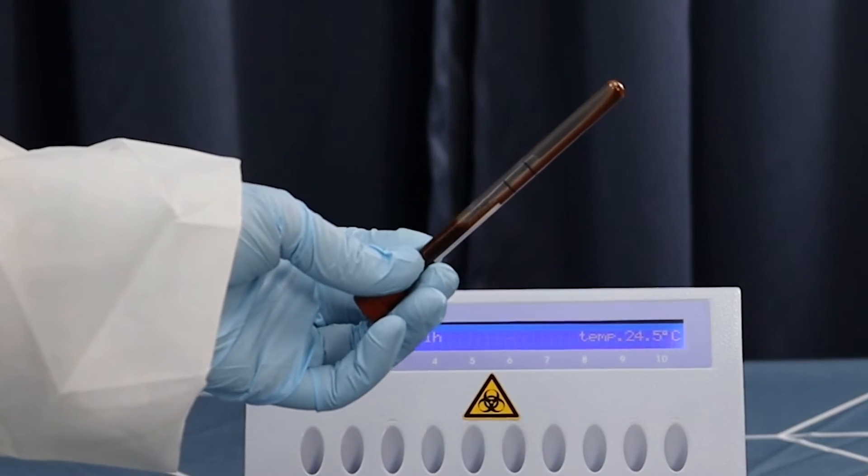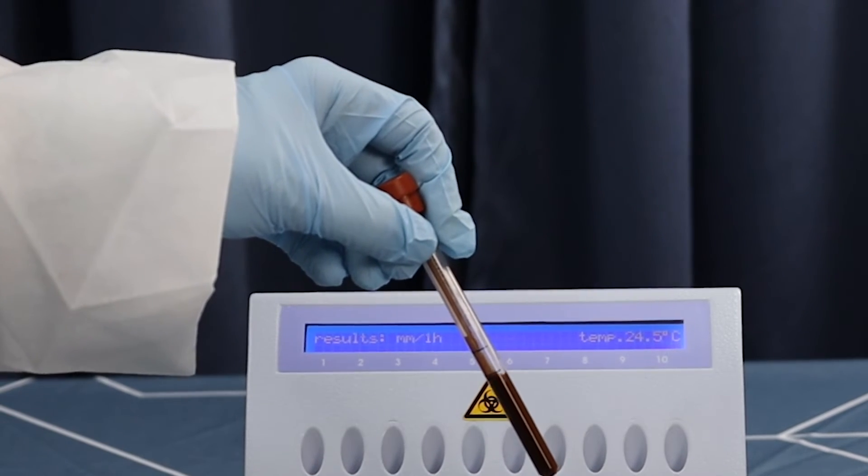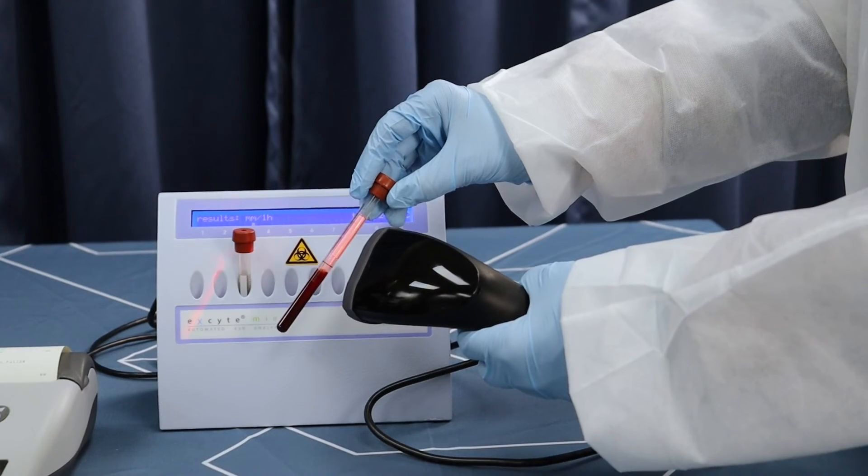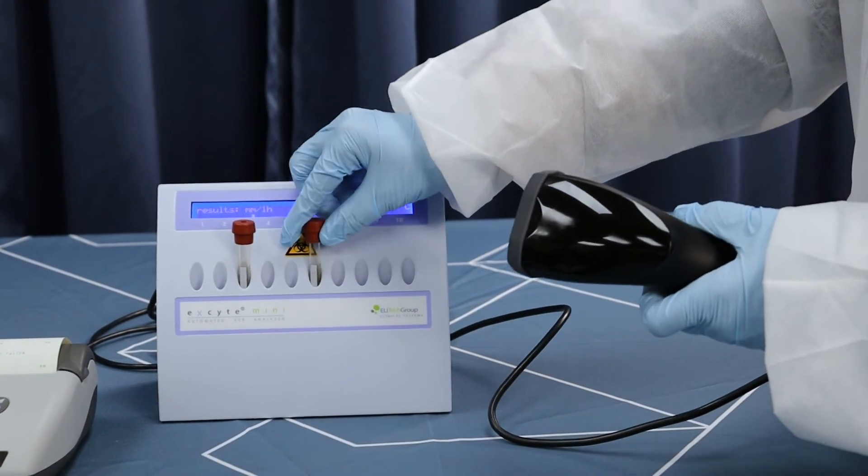Ensure the patient sample is well-mixed before beginning the run. If using barcodes, scan the sample ID, then insert the well-mixed patient sample into any open position in the instrument.